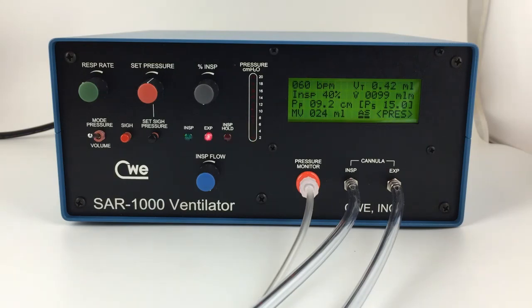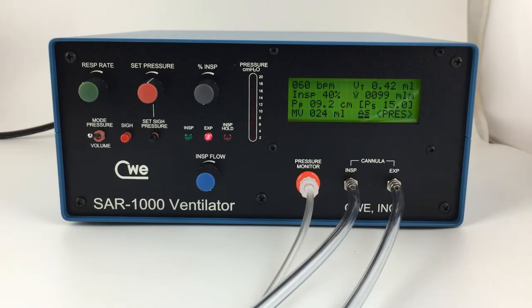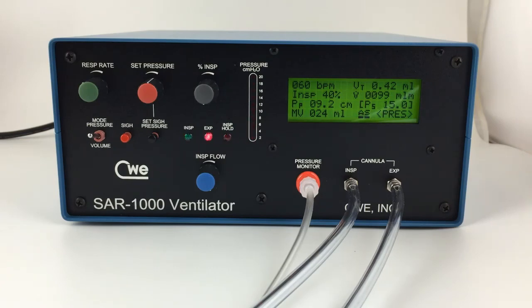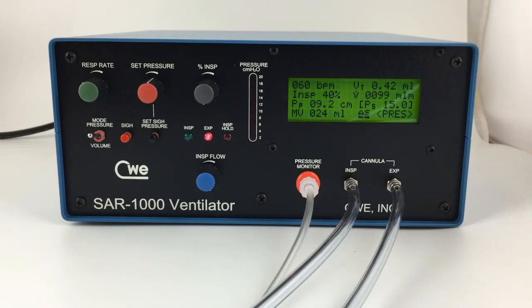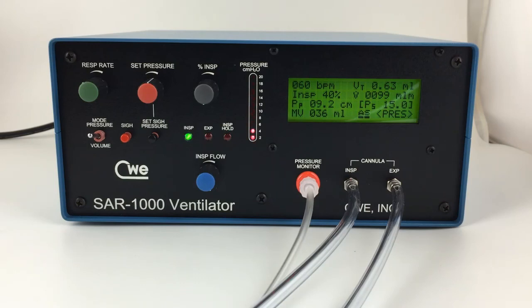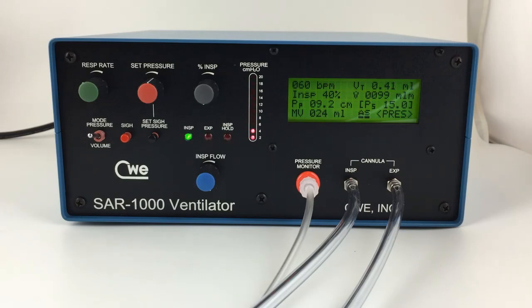That completes the instructions for the SAR-1000 Small Animal Ventilator by CWE.